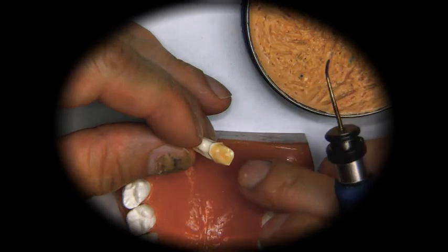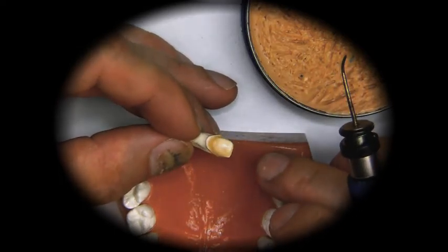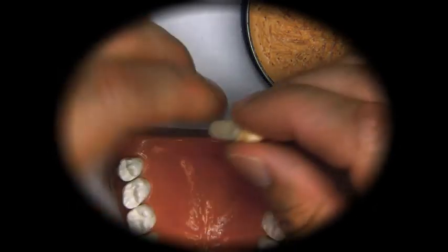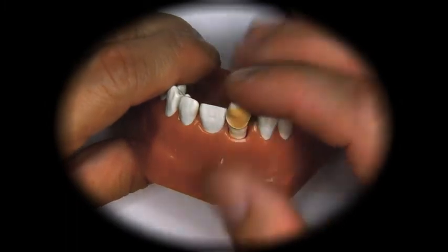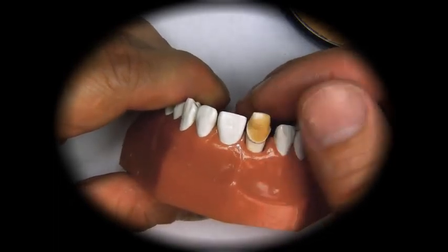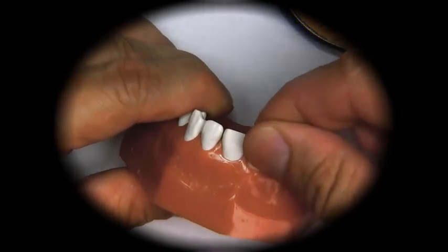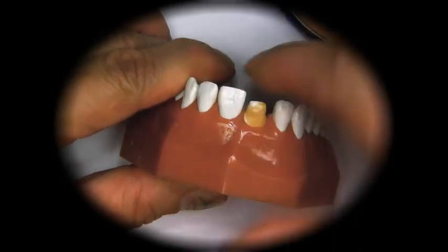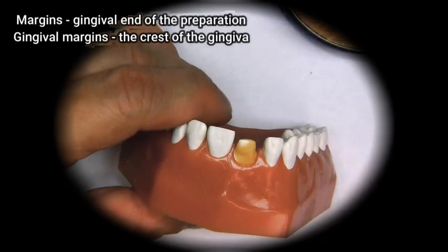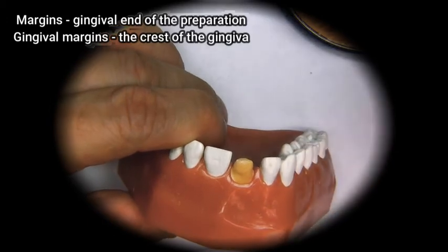Once we see the wax turn matte, or not shiny, we know it's starting to cool. Once it's cooled a little bit, we put it back in the model. Make sure that you don't press it from the incisal portion, because then you may crack the wax up off the die and you'll have to start over. We hold the die from the lingual, or tongue side, and the labial, then push it all the way down until the margins are below the gingival replication. We can then add some wax where it's thin and complete our coping.